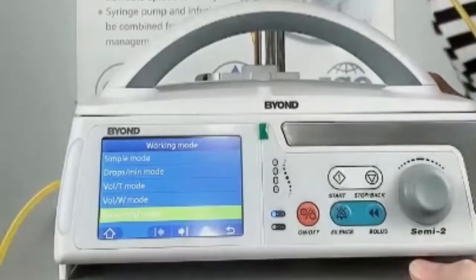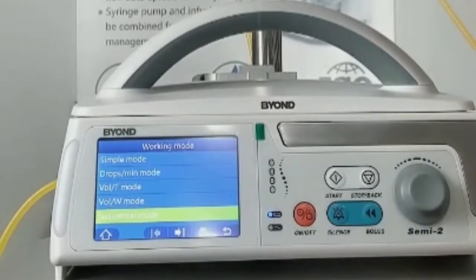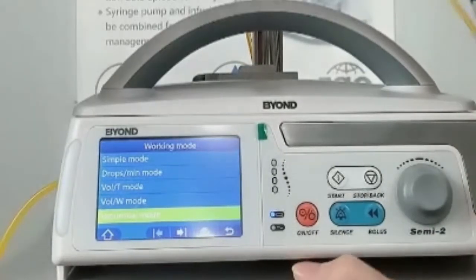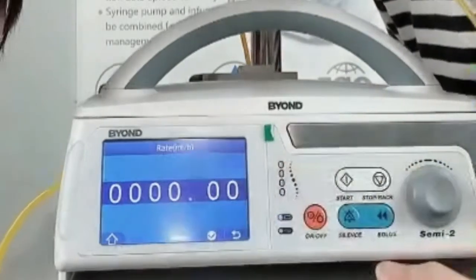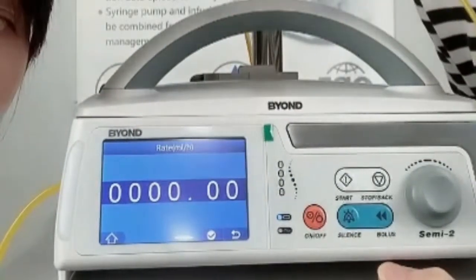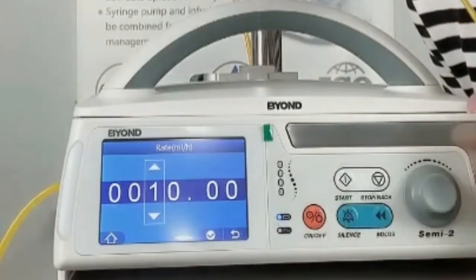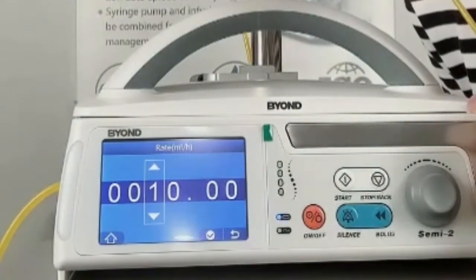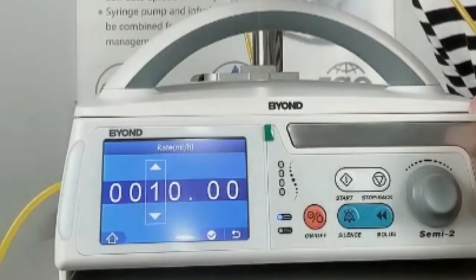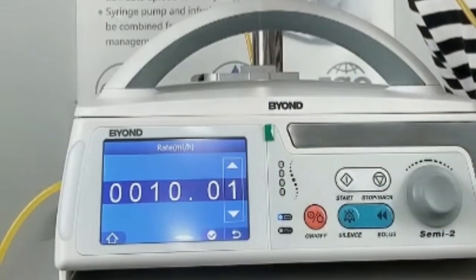Now I will show you and tell you all the modes. The first one is the simple mode. Simple mode means that you can set a rate directly. It can be set from 0.01 milliliter per hour to 2,000 milliliter per hour, with a step of 0.01.